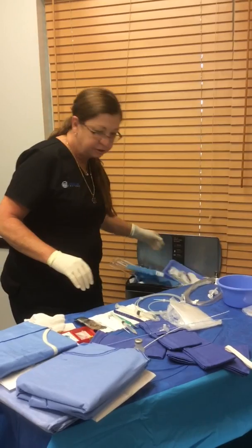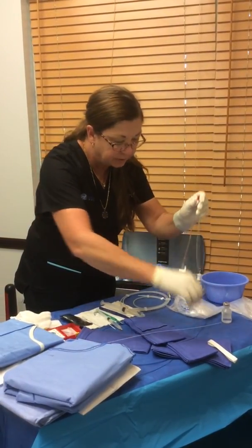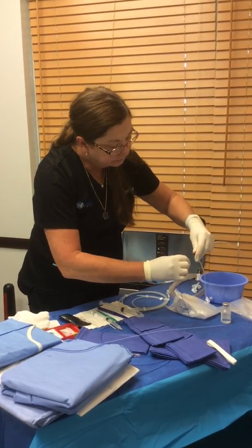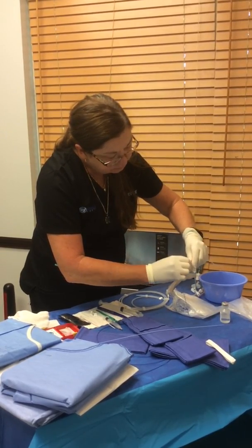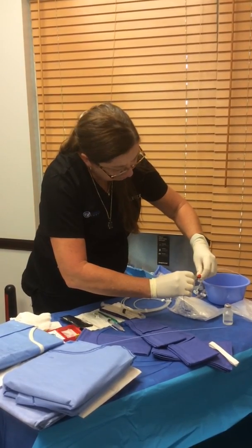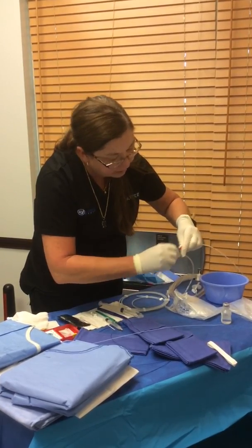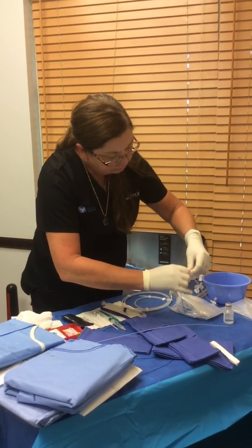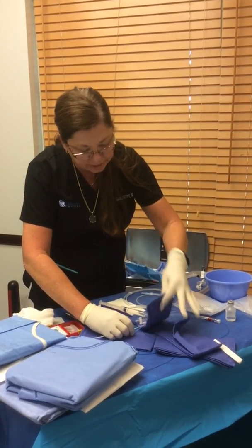Throw away my garbage, and I'm just going to put the sheath inside of here now, because your doctor likes it that way. Try and put it in there, and then I'm just going to anchor that down real good.